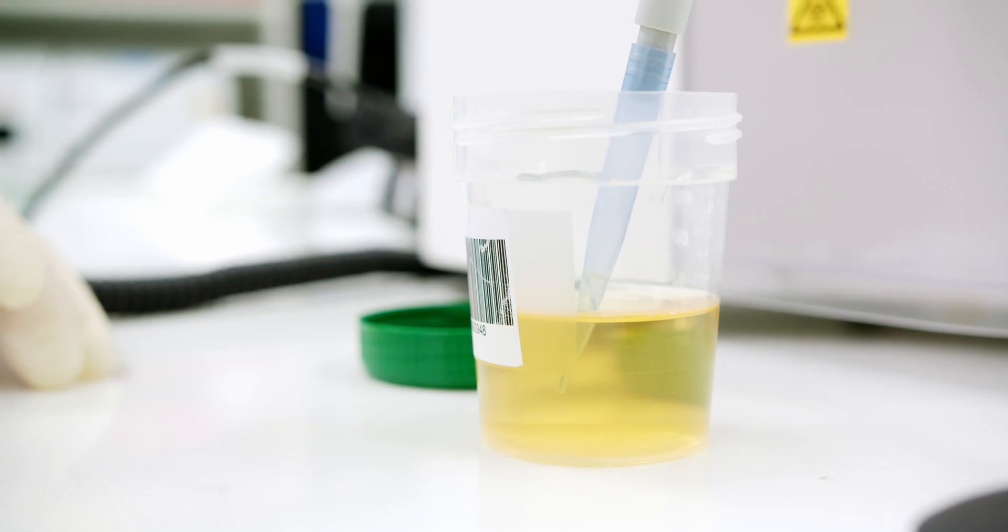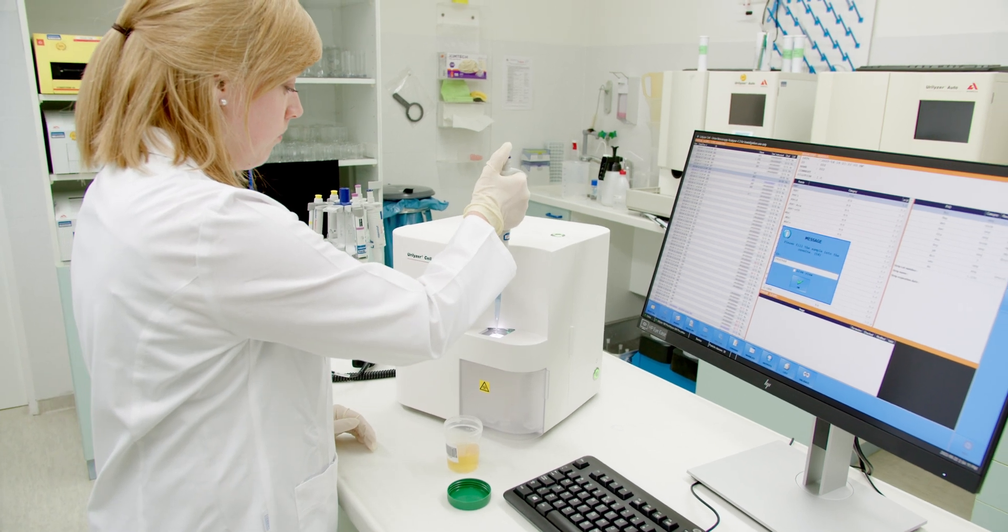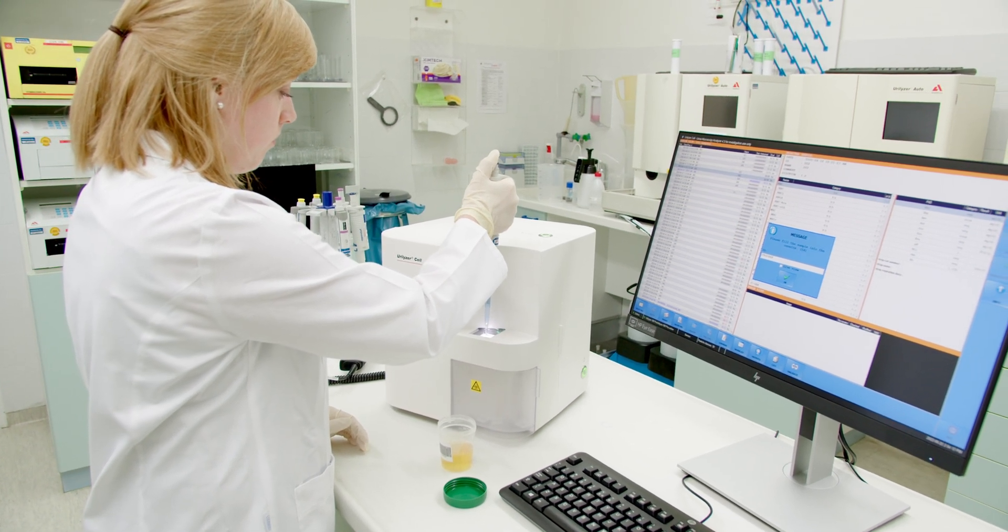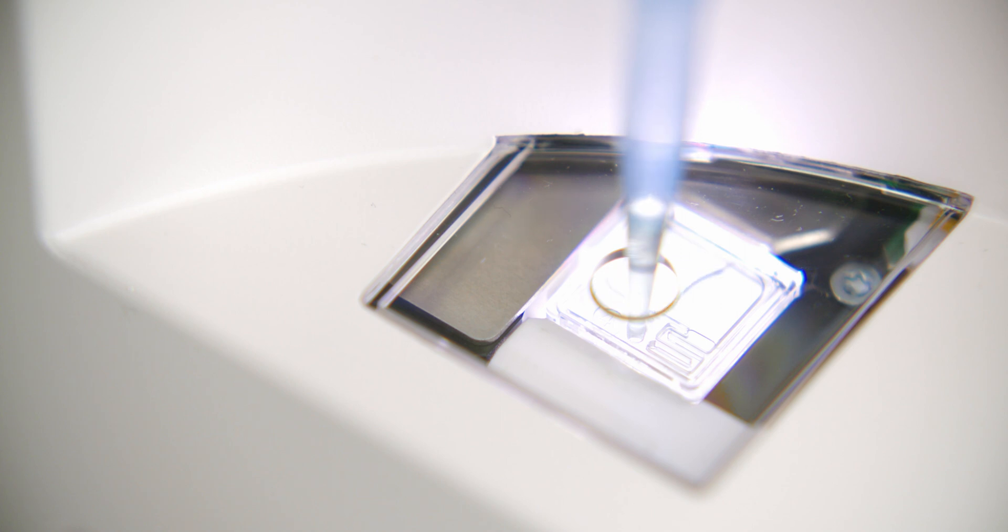The pipette tip is placed vertically on the opening of the cuvette with little pressure. The sample volume should not be pipetted in one go.